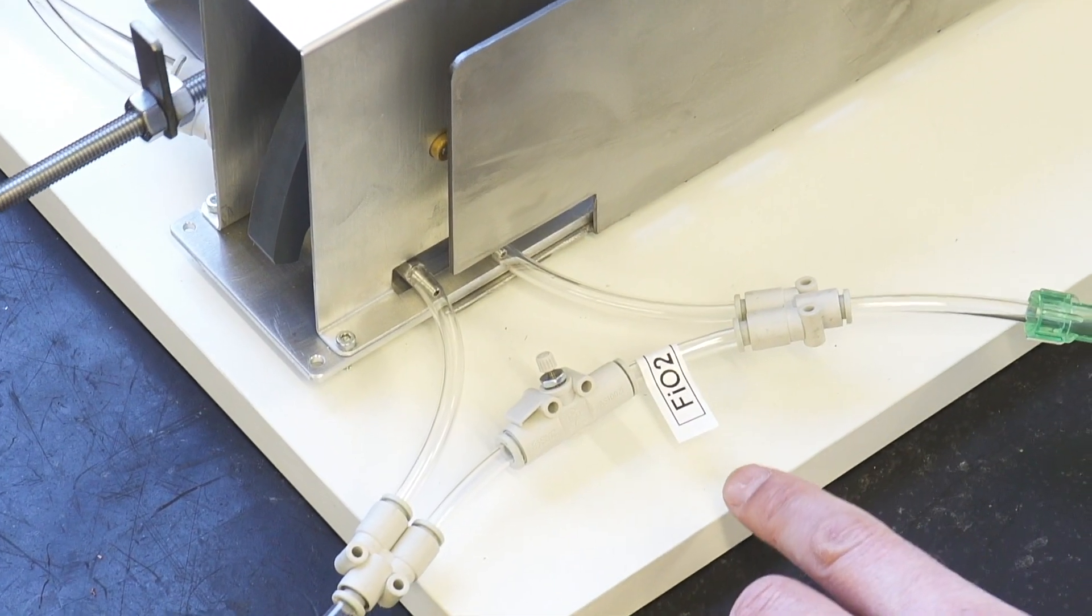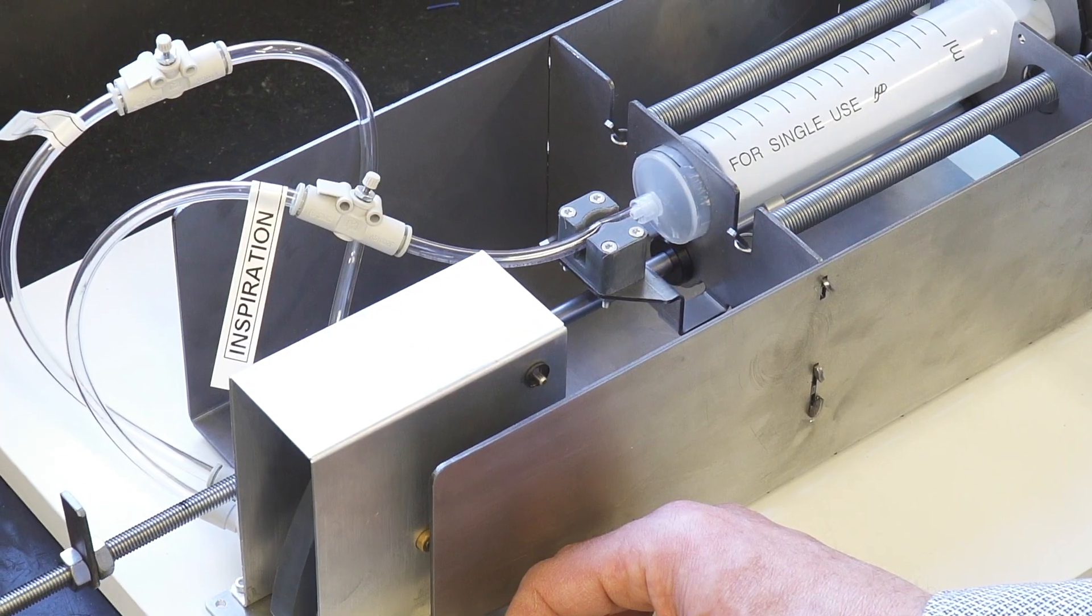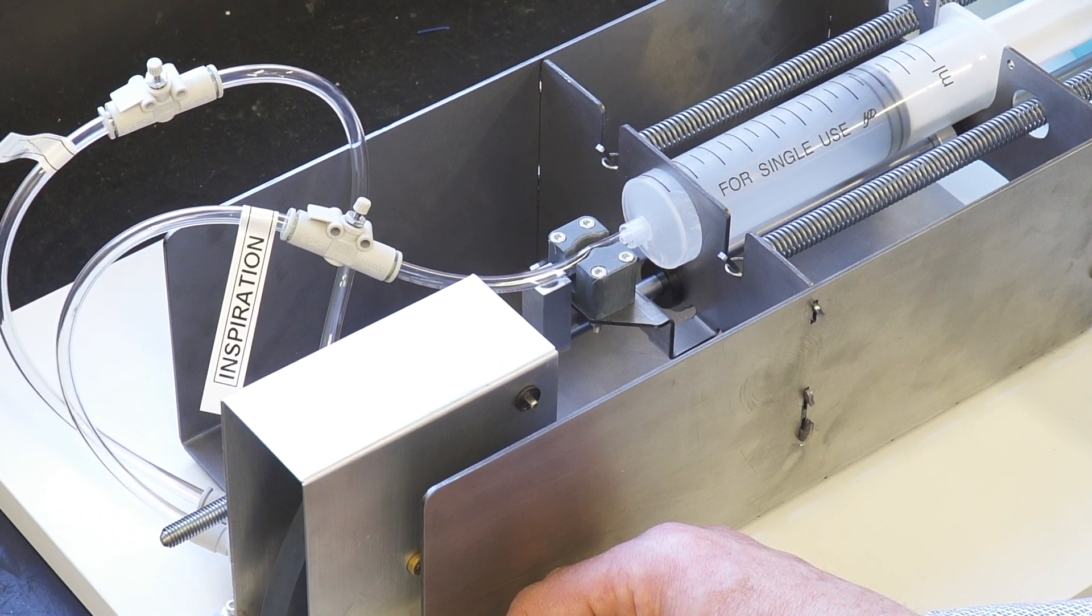This control here is the level of oxygen that's delivered. You can go up to 100% oxygen if you want to.